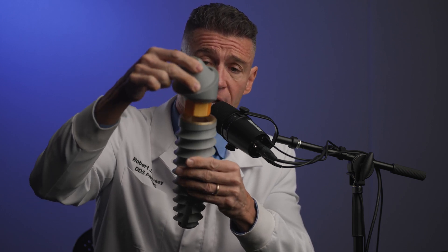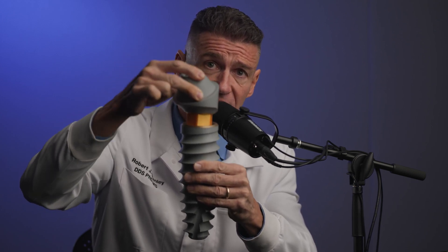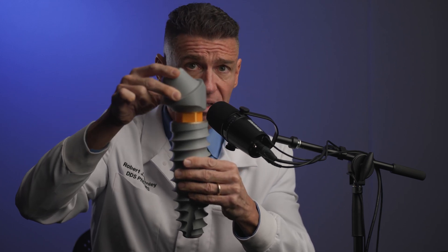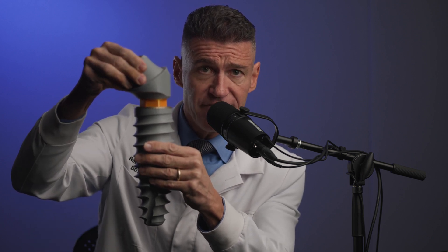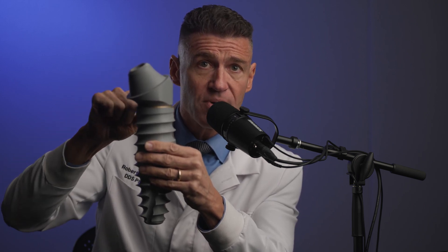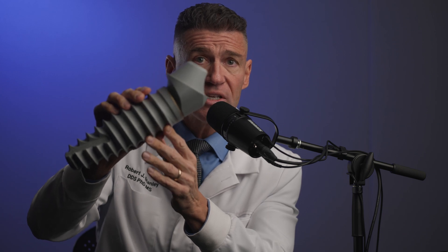So if the timing's wrong, no matter how many times I try, it won't go in. I have to rotate until it aligns. Once it aligns, the line-to-line fit allows me to push it in, and then the conical seal seals around the edge. That's how we've traditionally been using these angled multi-units for an all-on-four in the posterior.